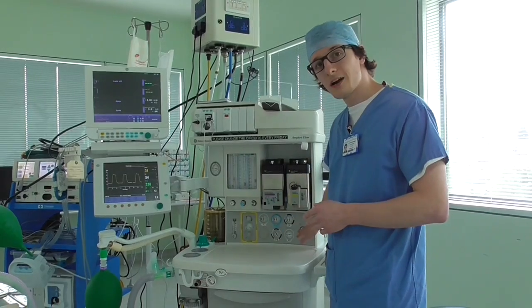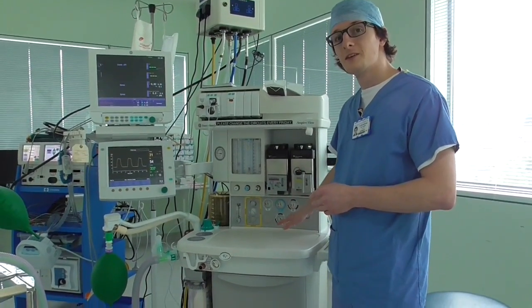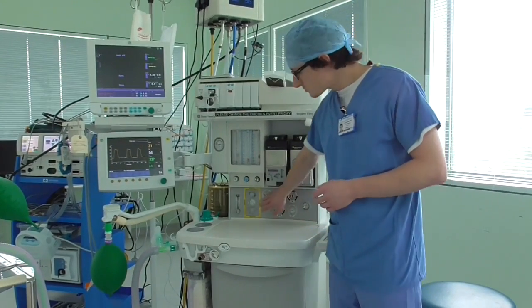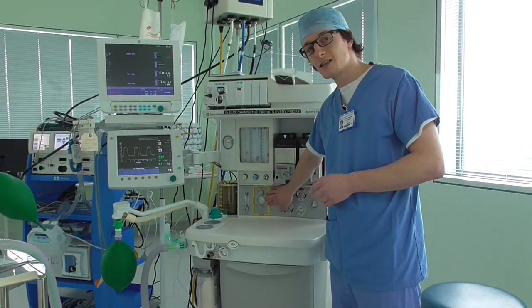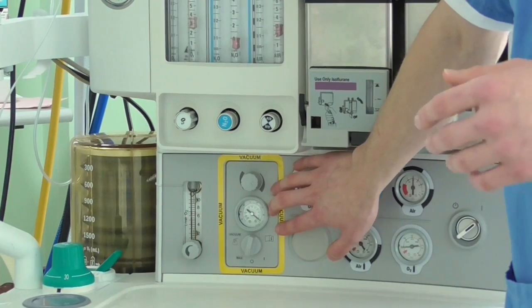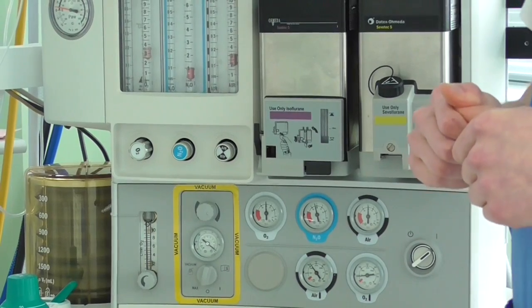Underneath there's a variety of controls and more monitoring so that you can see the inner workings of the anaesthetic machine. This control here is controlling the anaesthetic vacuum, which provides suction that can be used for many different functions such as removing fluids.